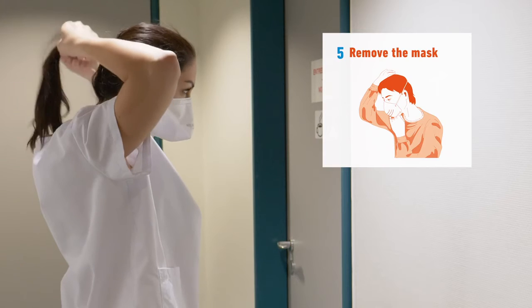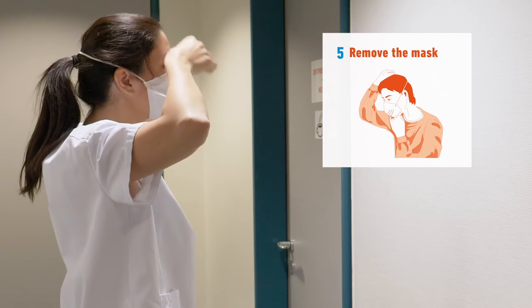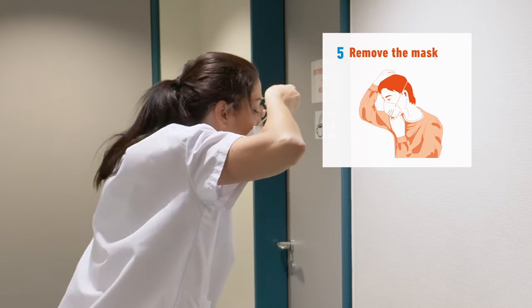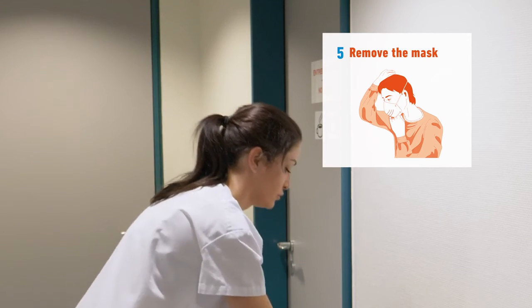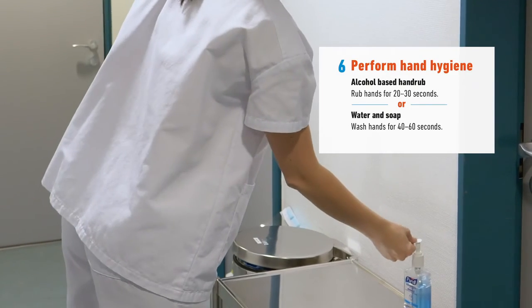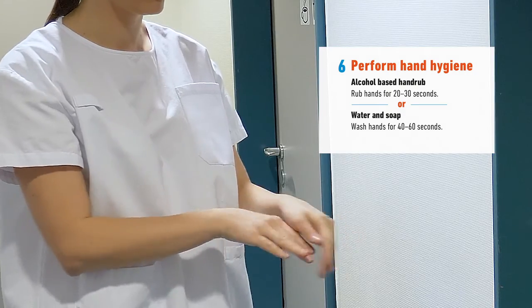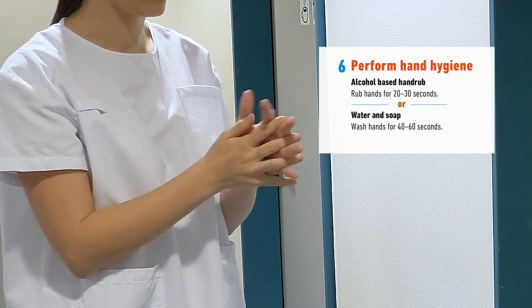Next, remove the mask or respirator by pulling it from the straps at the rear and disposing of it in a disposal container or garbage. Avoid touching the mask. As a final step, perform your final hand hygiene with alcohol-based hand rub or with soap and water if hands are visibly soiled.